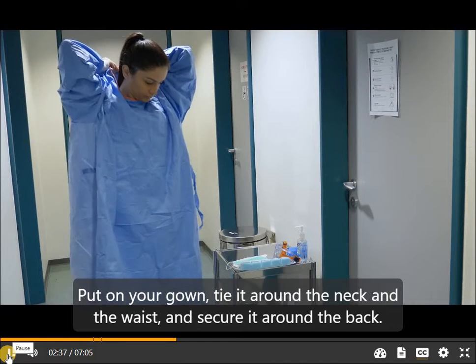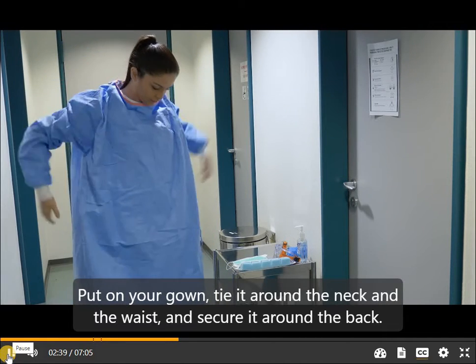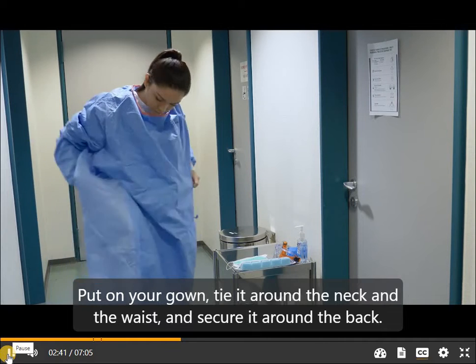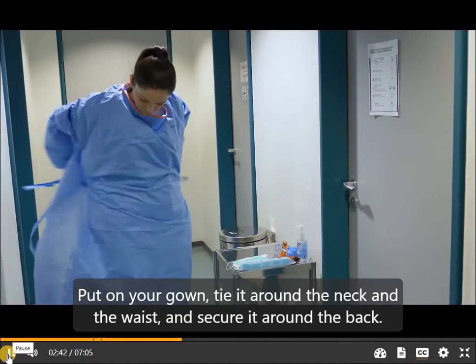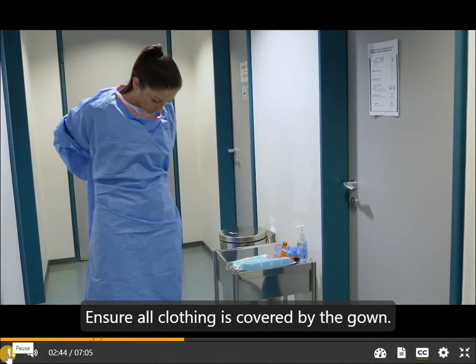Put on your gown, tie it around the neck and the waist, and secure it around the back. Ensure all clothing is covered by the gown.